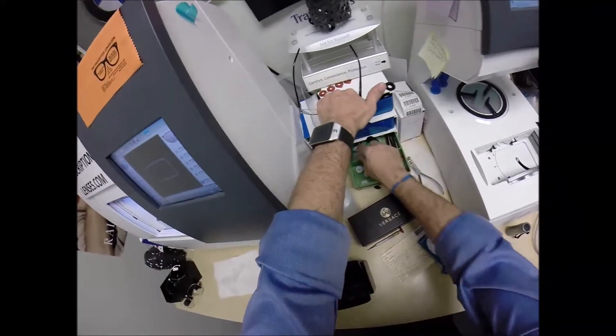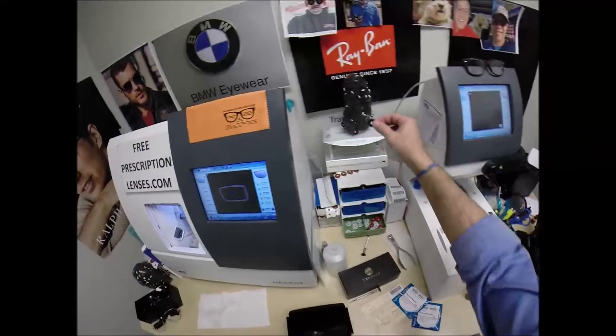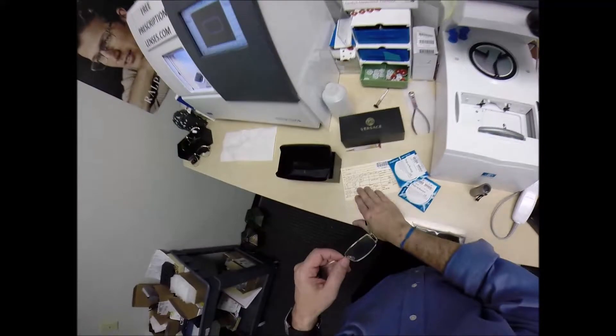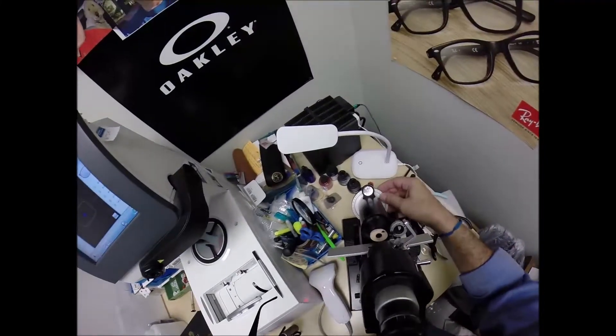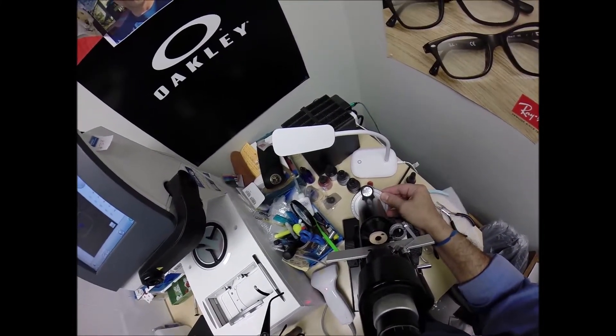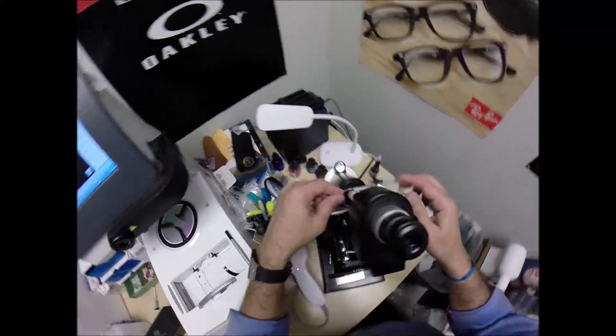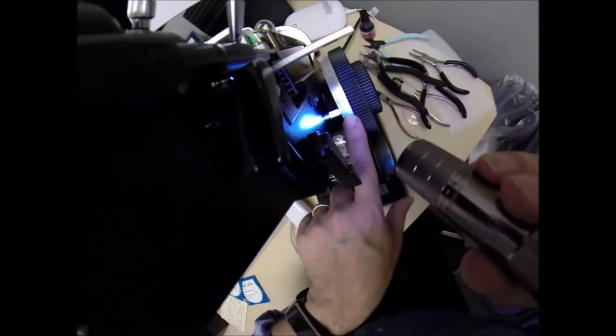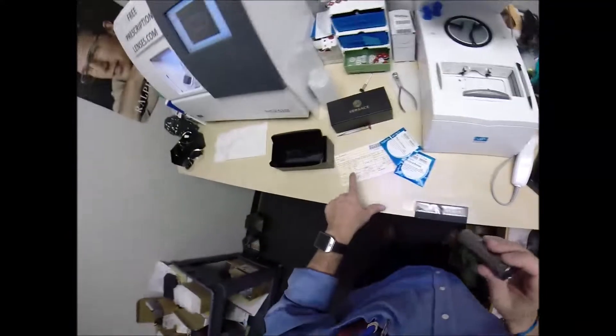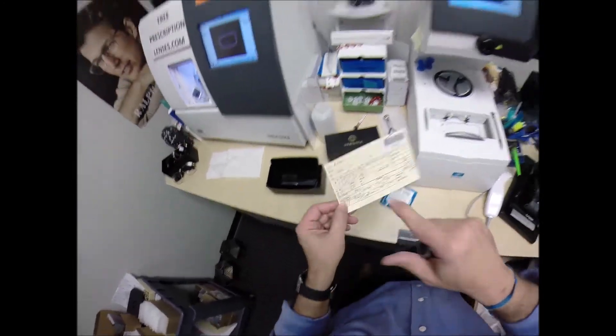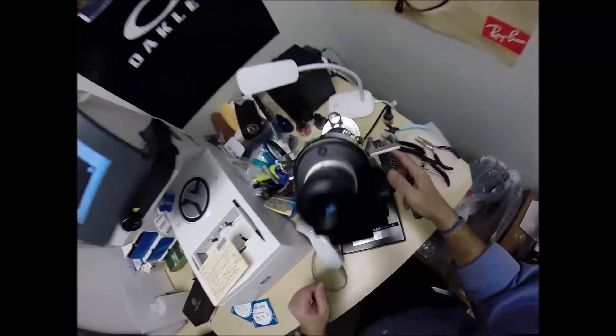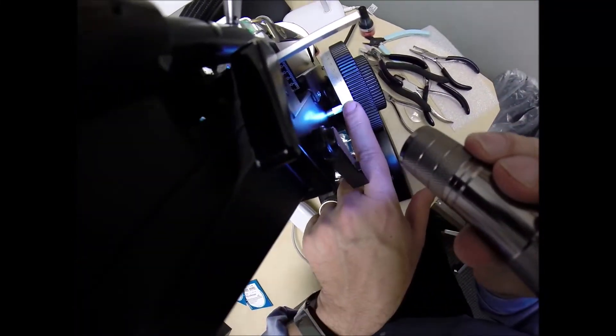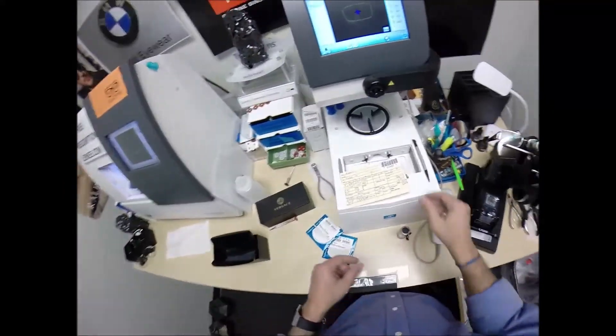I'm going to do a little bit of lefty Lucy. Now I'm not taking it out all the way. I just loosened it just enough. So there's a gap in there. You don't want it to hit a hard surface and go bouncing. I'm going to tuck the lens in. We're going to use my fingers to make sure everything is in there smooth and no sides poking out. Do a little bit of righty-tighty. That goes in there and we back shut. Come down here to the lensometer. Put it in over that black dot. Read the power and I am getting minus one on the dot. You have one and a quarter steps of astigmatism in your left eye. That is cut perfectly.